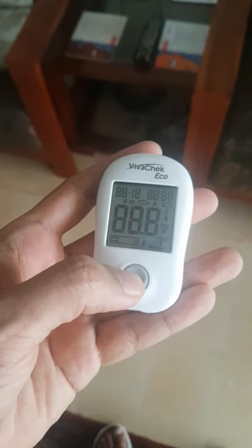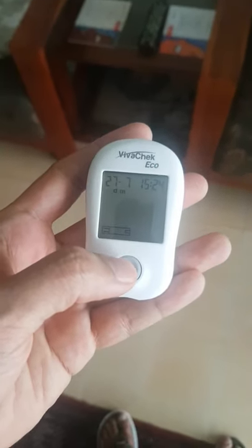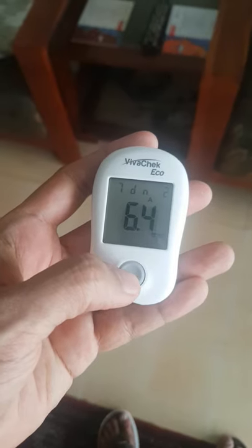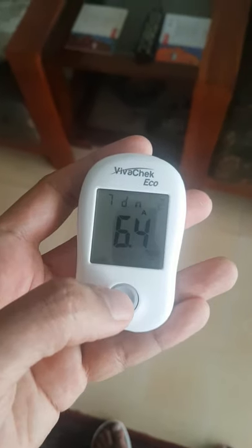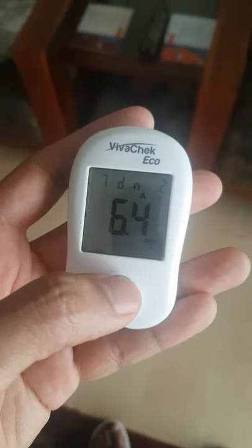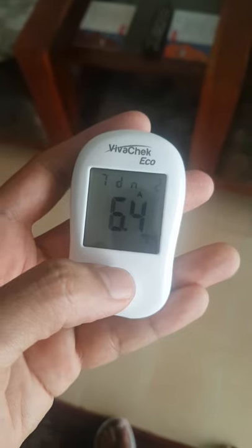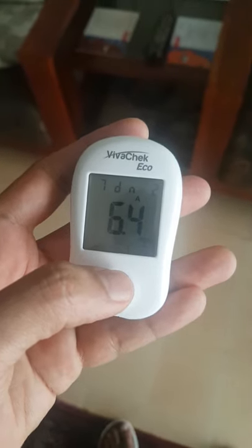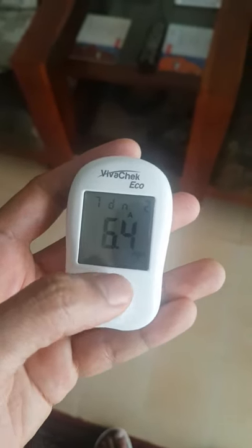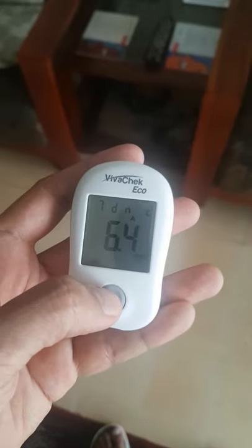Let's check from our last reading. It's on. Let's just press it. This is the seven days average. Since I took two readings — one was 5.9 and the other was something around 6.8 — the average is 6.4.